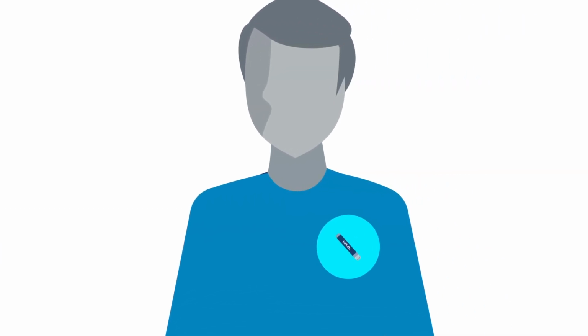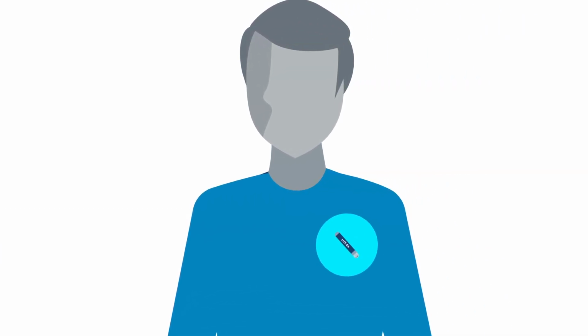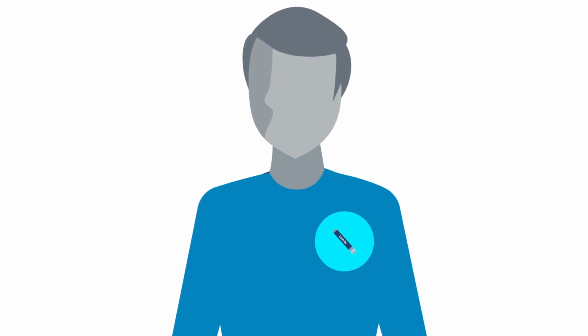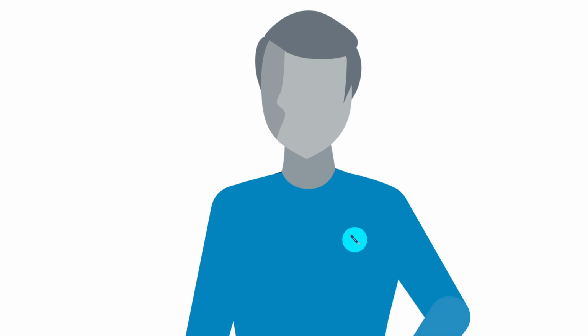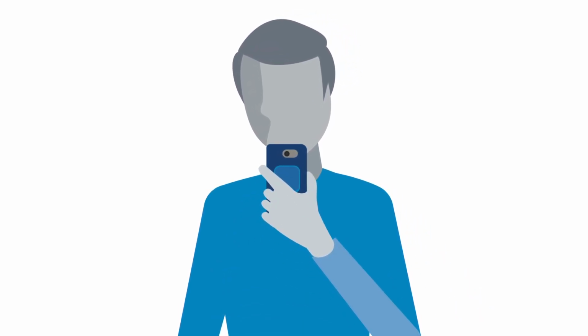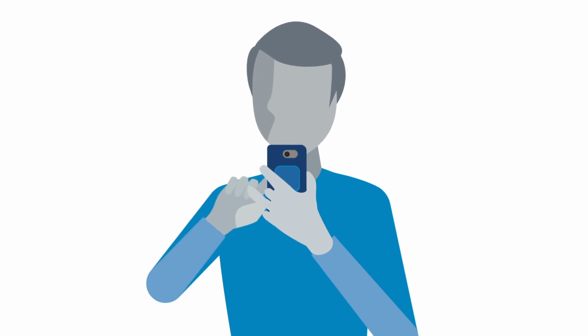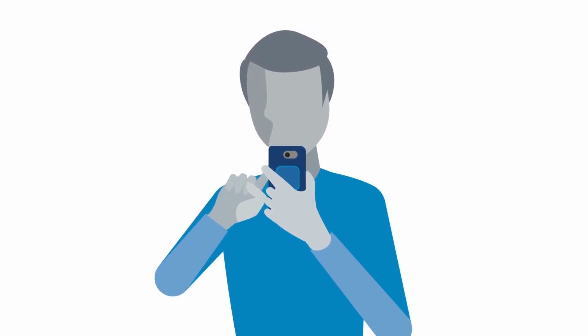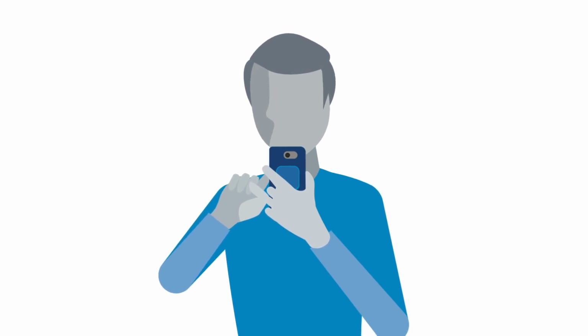Sometimes it can be helpful for your healthcare team to review how you were feeling at a certain time, along with the heart rhythm data recorded by your LUX-Dx ICM system. So they may ask you to record information about symptoms you're experiencing. Not everyone who has the LUX-Dx ICM system needs to do this. Your healthcare team will tell you if you need to record symptoms.